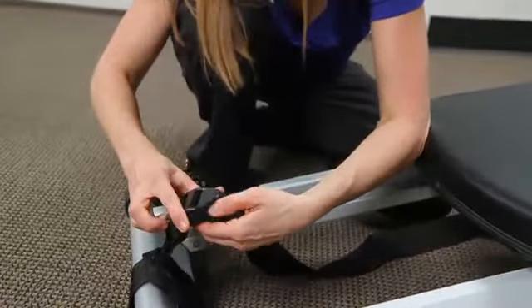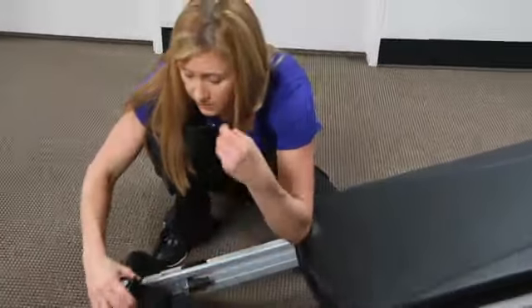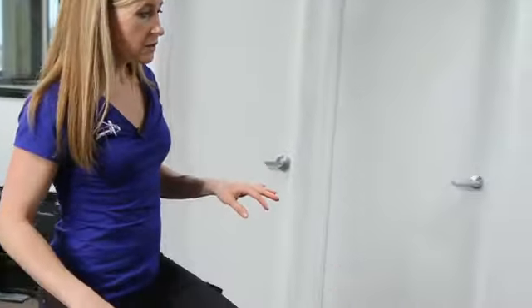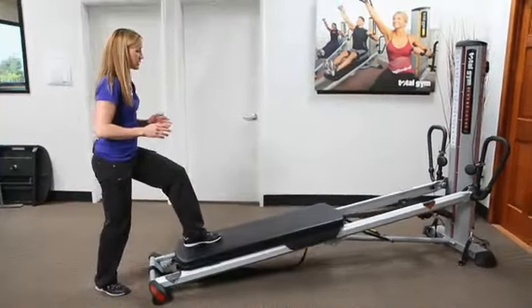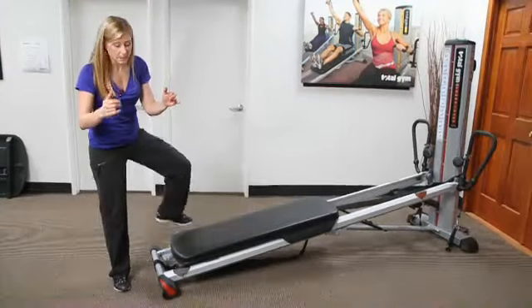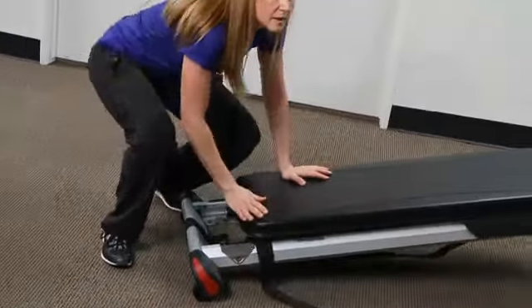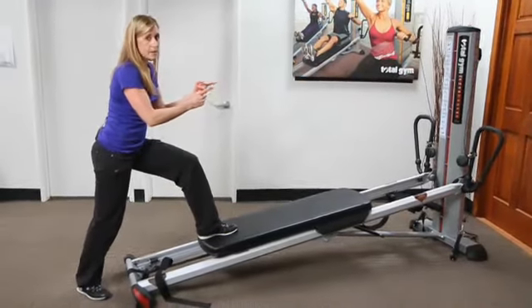One of the nice things about the slide distance regulator is that it regulates from both ends. If I'm working with someone on lunges and right now it's pretty loose, I have full range of the glide board. But if I know the person might lose it at a certain point, or I don't have an extra set of hands because I'm controlling from their knee or hip, I can shorten up the strap and it limits the range of motion with the board when it's moving up.